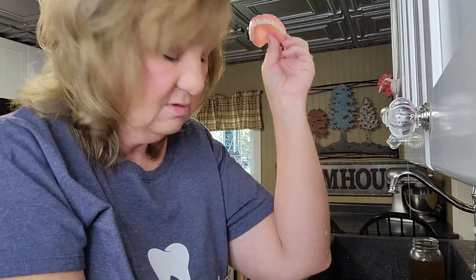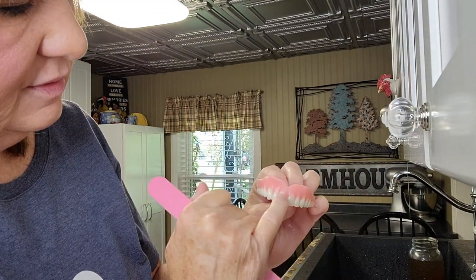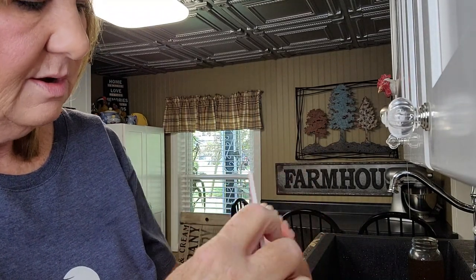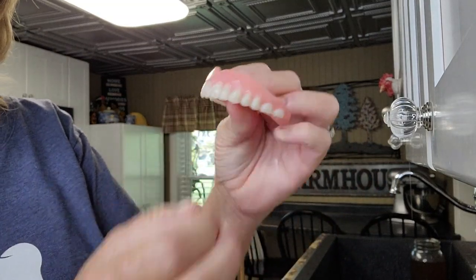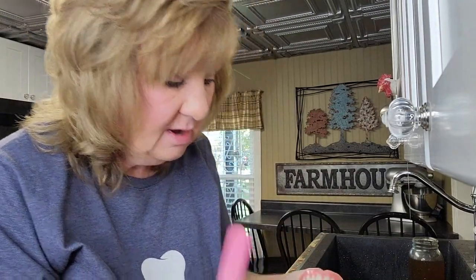When I edit videos I noticed right here there's just so much. So I'm going to try to file it down just a tiny, tiny bit. I'm using this file — it's not very rough because I've used it before. I think it's right here. The highest spot is right in the center, so I'm going to just lightly give that a file. Marge Simpson, I don't want to look like you. Alright, that's all — I filed that bump off. I can tell the bump is gone. That feels better already. My gum looks way more natural now. What a difference.